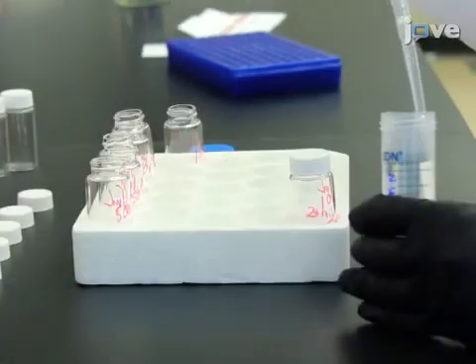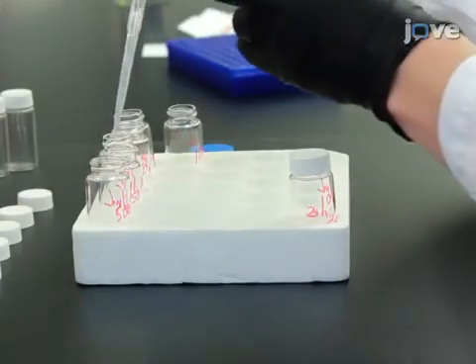Following this, prepare stock solutions of tacrolimus by performing appropriate dilutions of the stock solution using pure methanol.